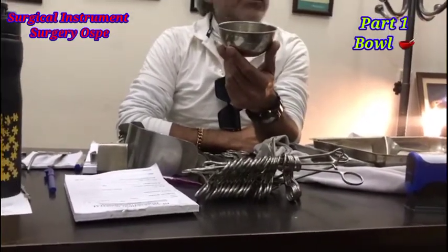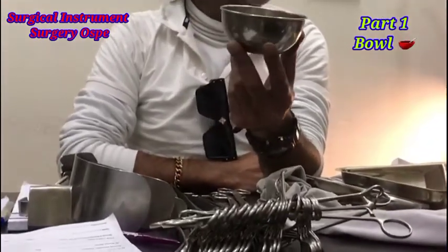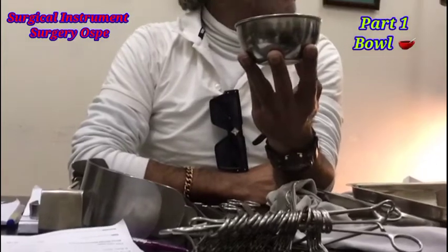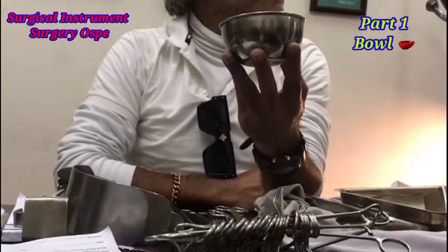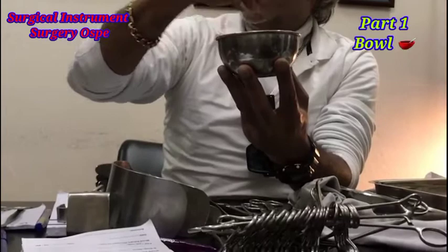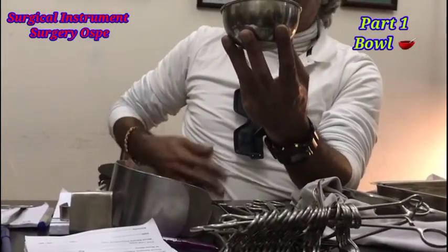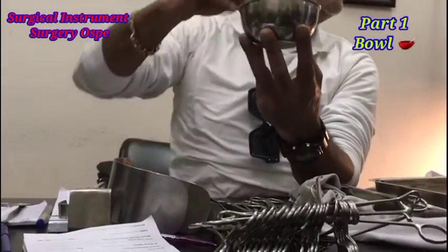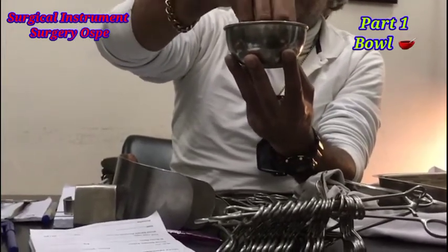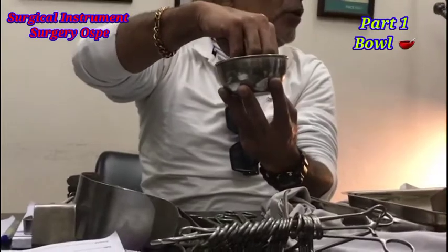To mix. You can put pyadine in it, and when you drape the patient and paint it, you can use that. You can put saline in it. You can put hydrogen peroxide in it. Any liquid you can put in this bowl.